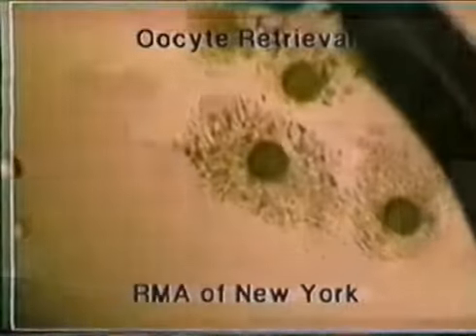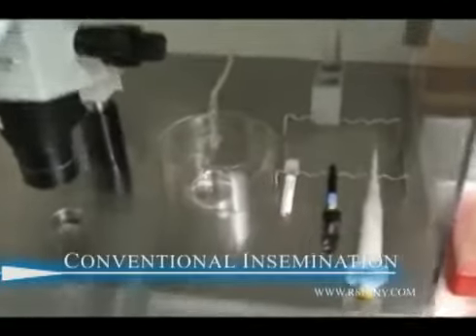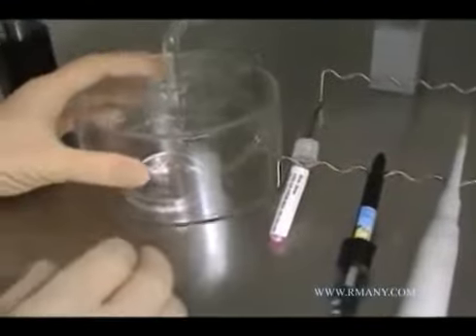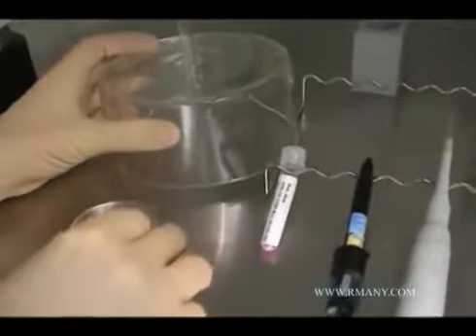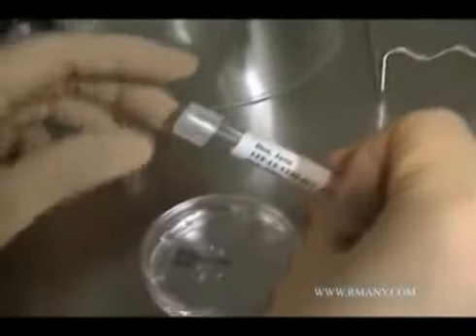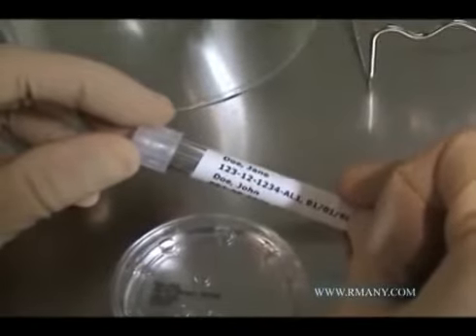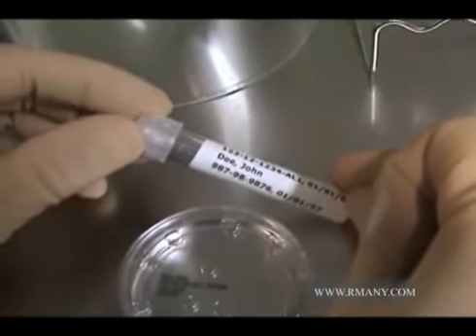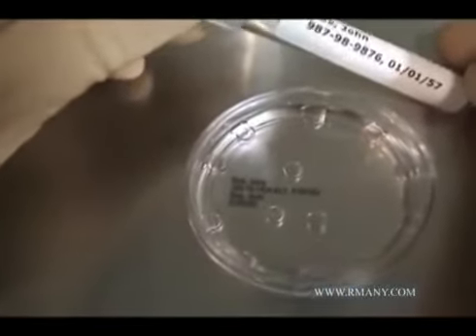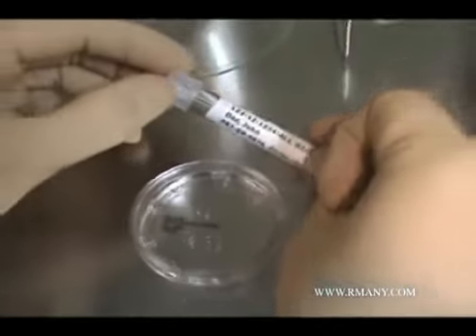If the sperm concentration and motility are deemed adequate, a conventional insemination is typically performed. An insemination is called conventional when sperm are placed next to an egg and the sperm are allowed to penetrate the egg on their own. The first step of a conventional insemination is to have 2 embryologists witness the test tube containing the processed sperm specimen and the culture dish containing the eggs. The unique patient identification information must be verified by both embryologists before a precise concentration of sperm is placed into each media drop in the culture dish.